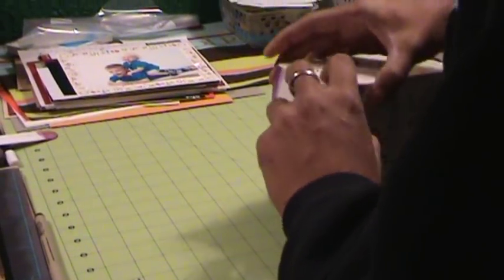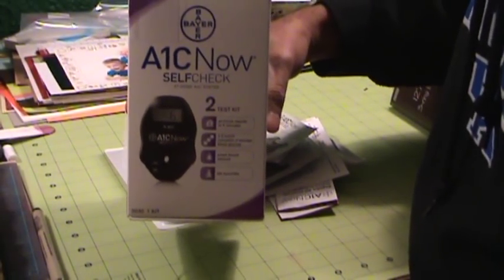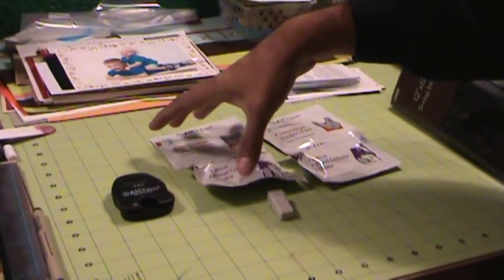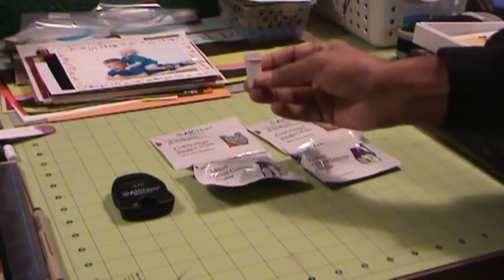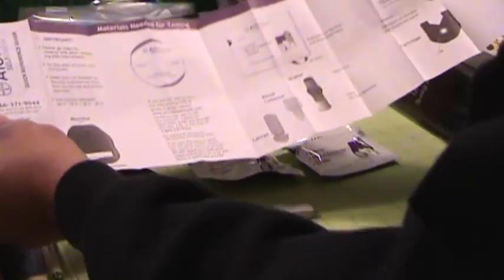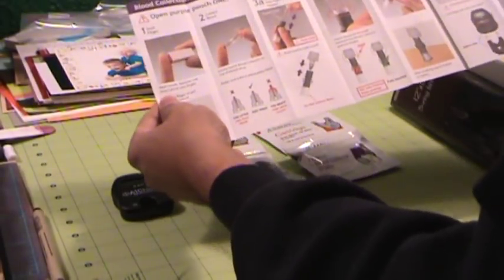First, opening up the package. I picked this up at Walgreens for just under $30. In the package you get a meter, one set for one test, another set for another test, and an extra thing to stab yourself with. There are two sets of directions — one in English and the other in Spanish. They are fairly easy to follow.